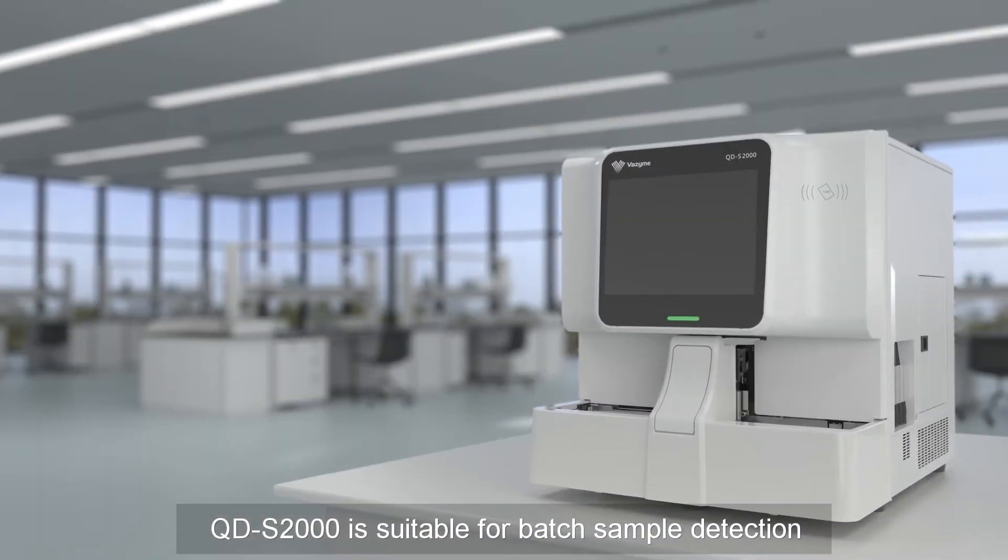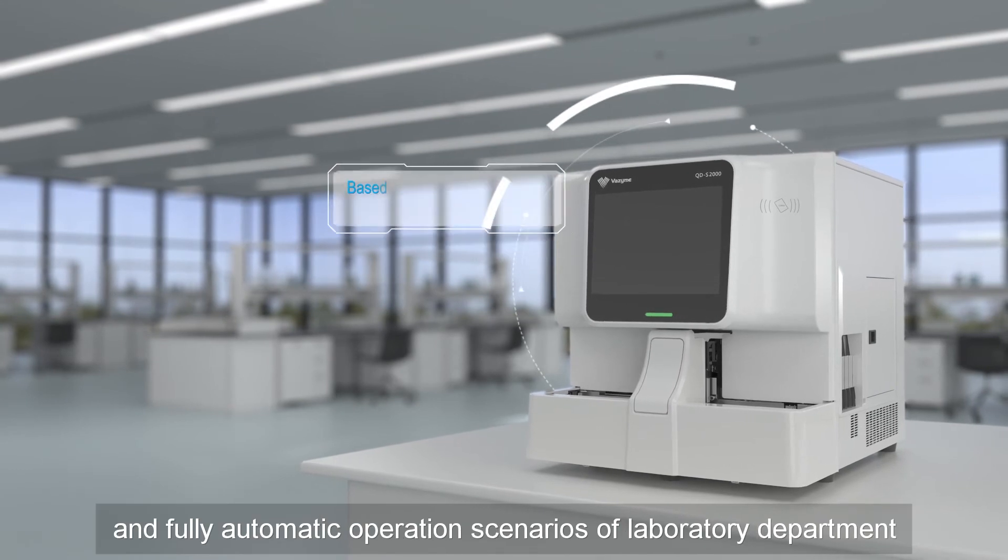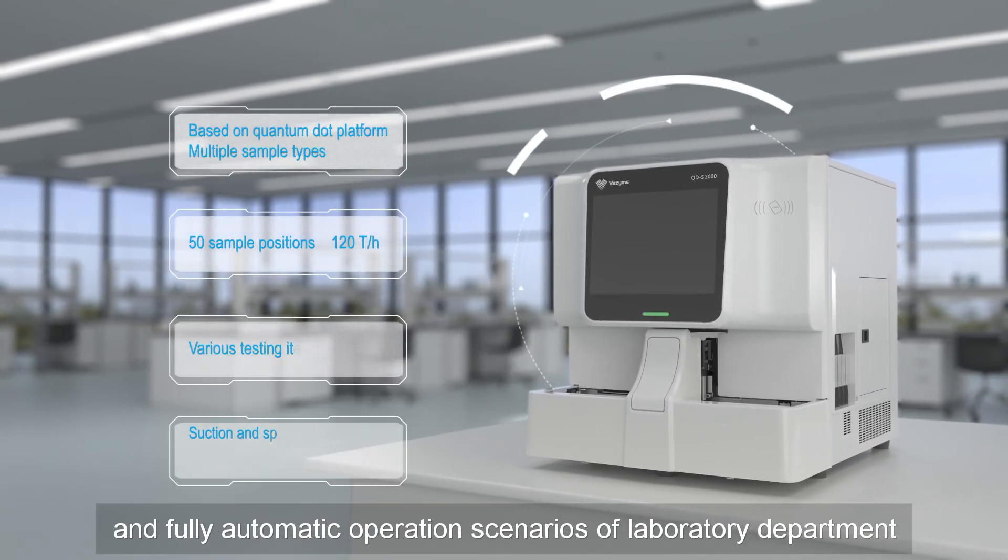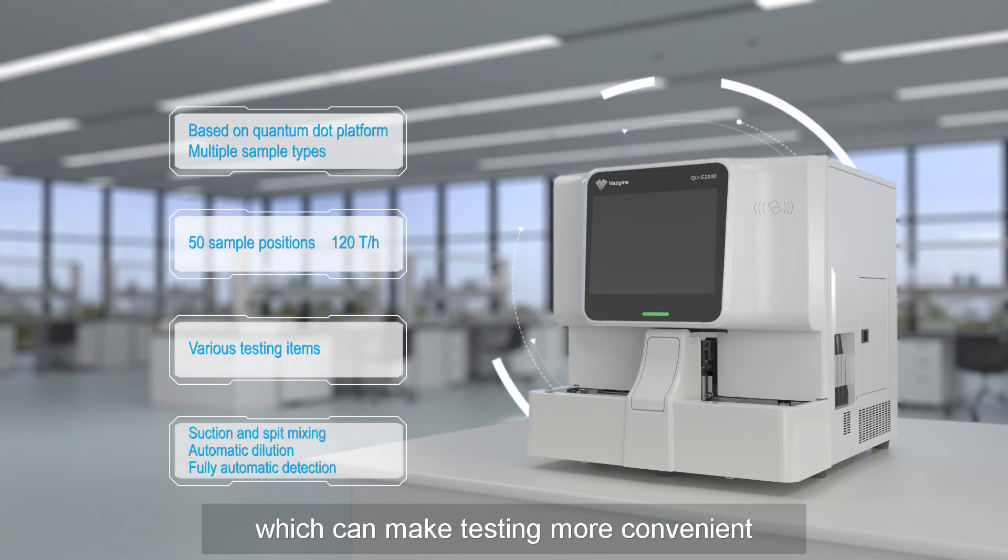QDS2000 is suitable for batch sample detection and fully automatic operation scenarios of laboratory departments, which can make testing more convenient.